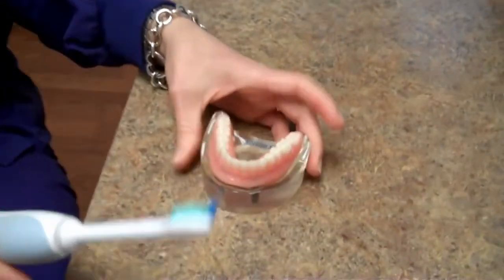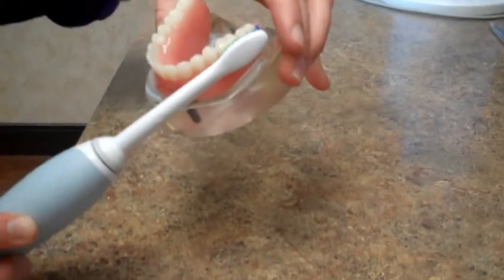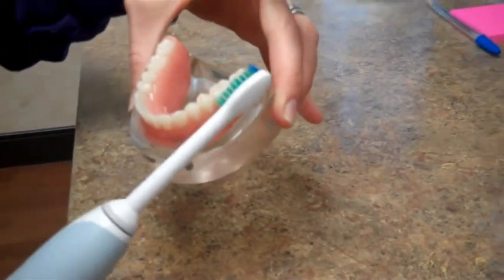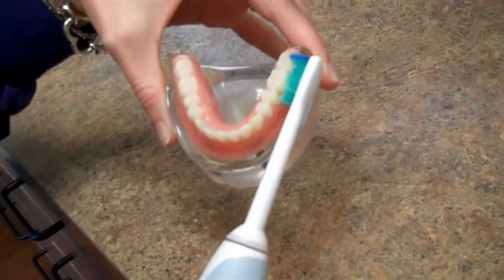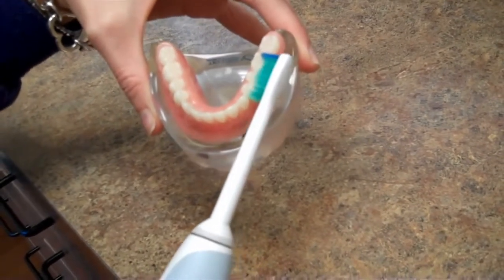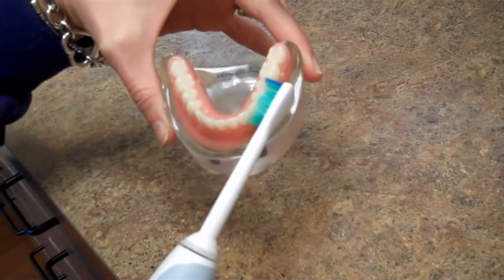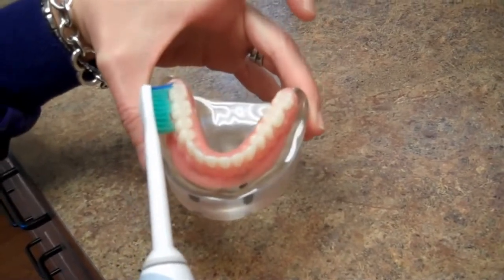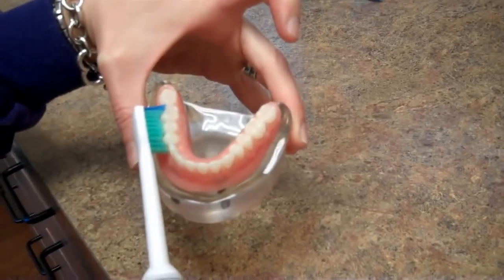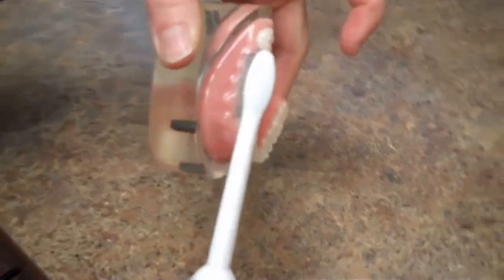This is how one should use it. You want to line the toothbrush up so that part of the sweeping motion is up against the gum line, but also on the tooth surface. You just merely set it there, and the timer will go off in 30 seconds. You just move it slowly to each quad when the buzzer goes off, and you switch to the other quad. There's no scrubbing like with a manual brush — you merely just lay it against the tooth surface and against the gum surface.